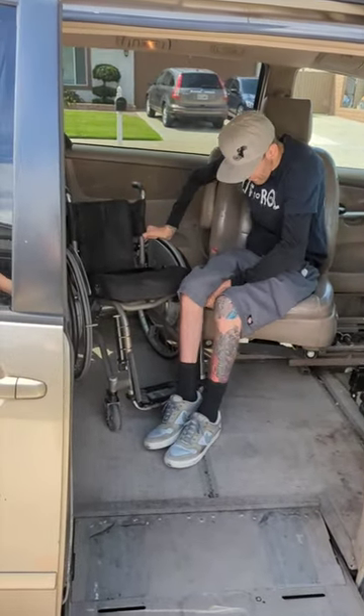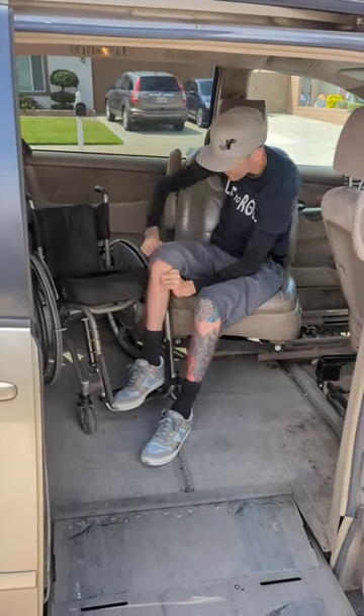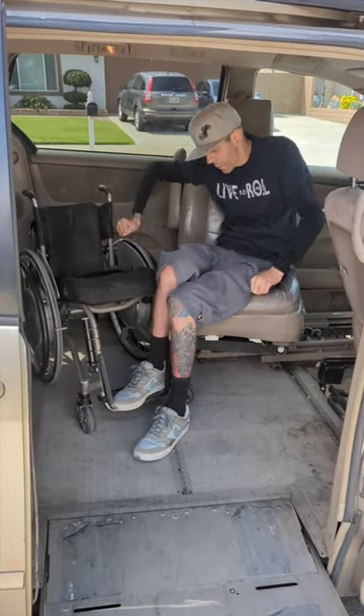I'm going to put my lead foot on the foot plate with my heel back and toes forward. And then once I'm in that position, I just kind of scoot around.